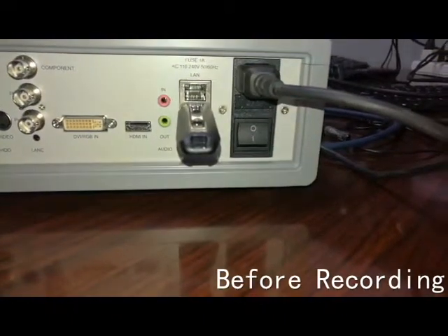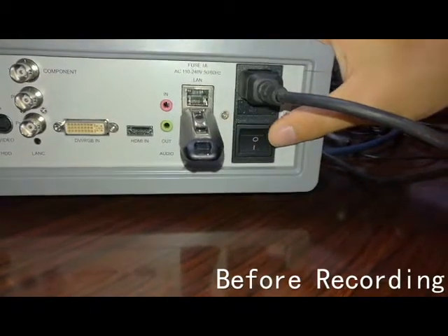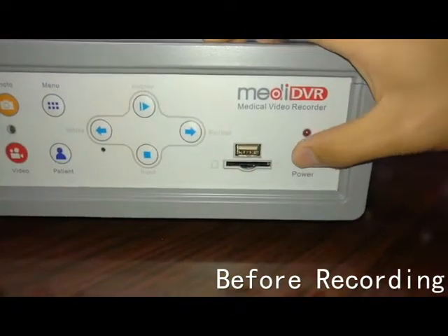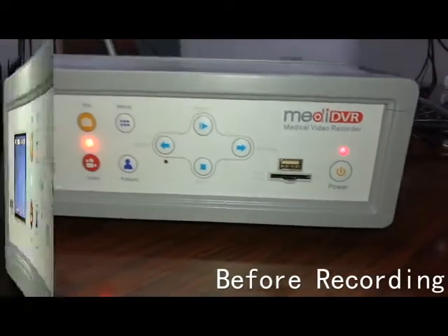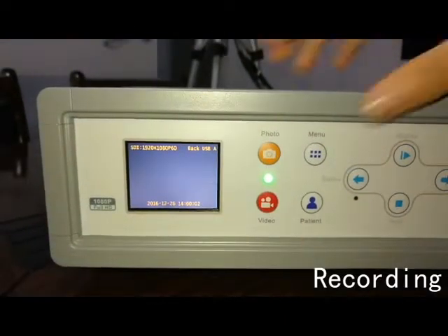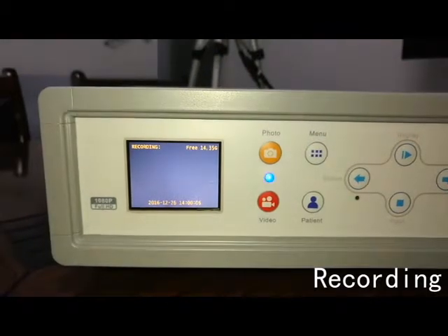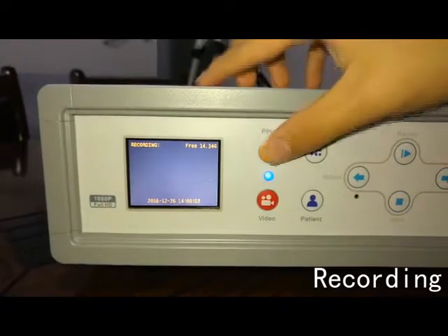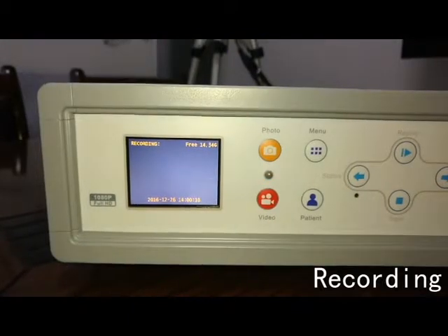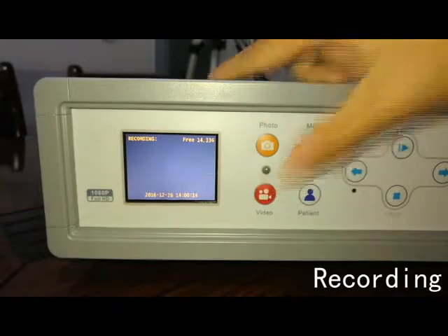Press the power switch at the back panel, then press the power button to start the MediDVR. Now you can press the video button to start recording. You can capture a photo at any time. Press the video button again to stop recording.